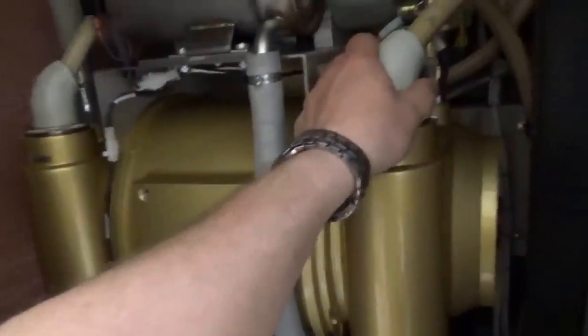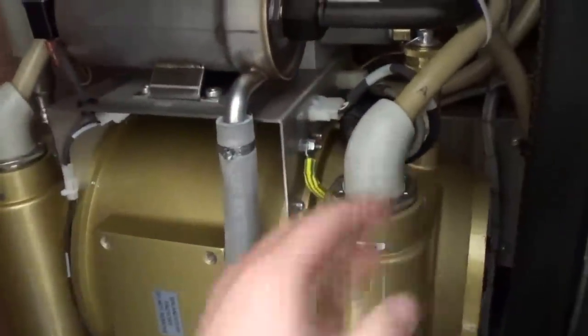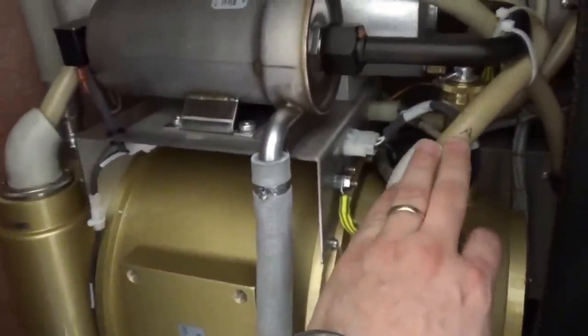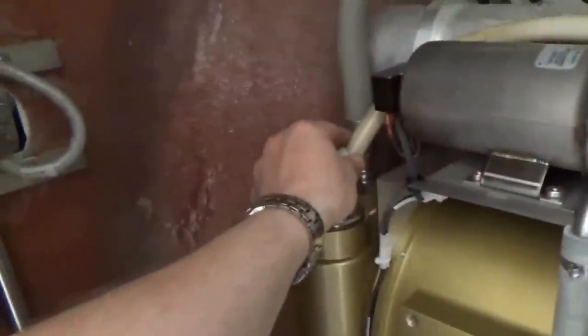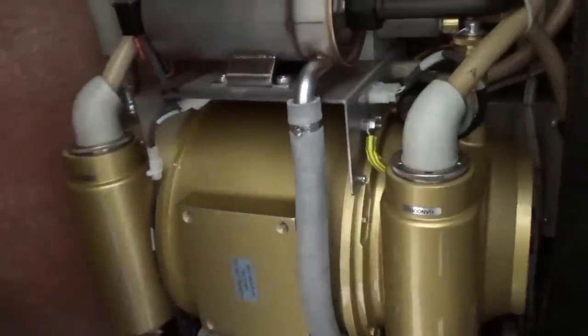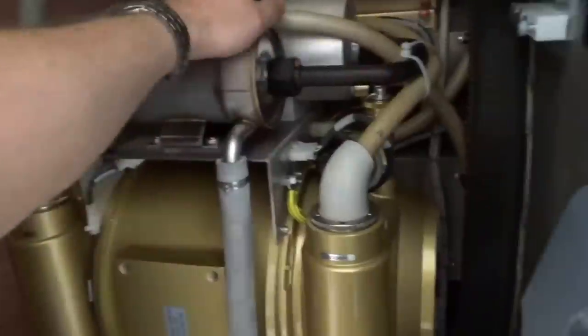As you can see, there are your high-voltage cables, which supply up to 150,000 volts potential between the two. We have the anode that can have up to positive 75 kV and the cathode up to negative 75 kV. The difference between the two is 150 kV — that's a lot of power at up to 1 amp.